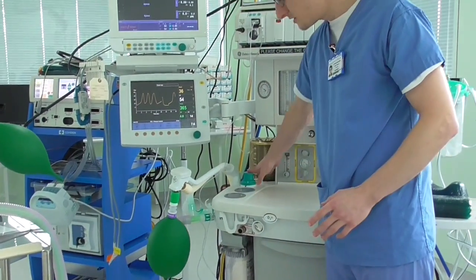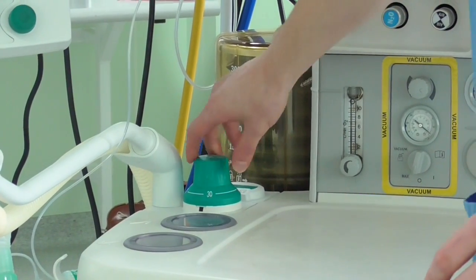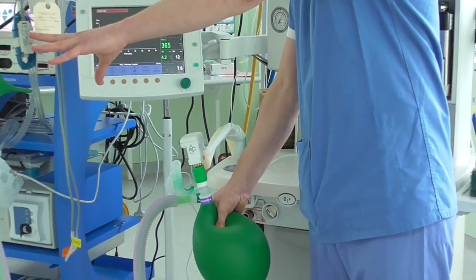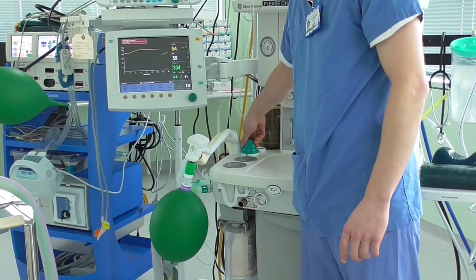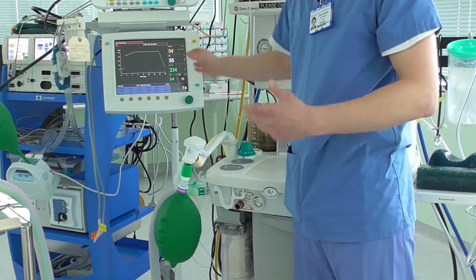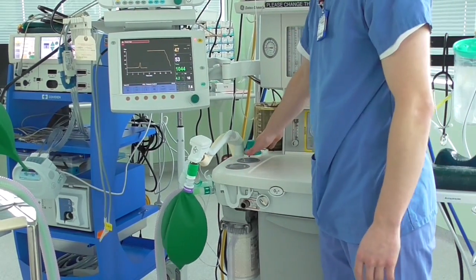This green dial here is called an adjustable pressure limiting valve. If I tighten it, a great deal of pressure goes to this green bag and the machine alarms. If I loosen it, it releases the air from the system and that goes out through the waste pipe.